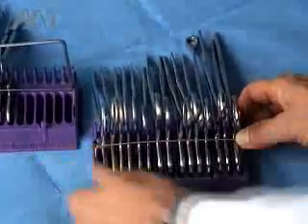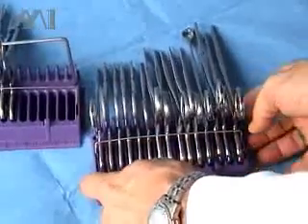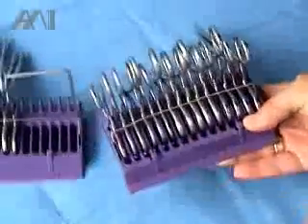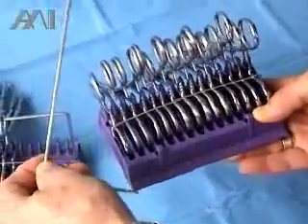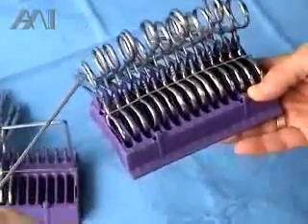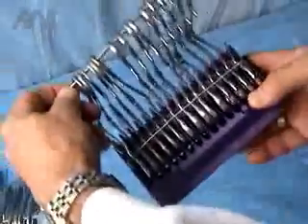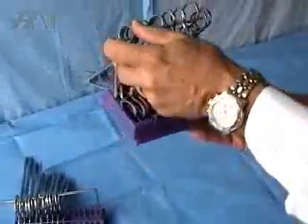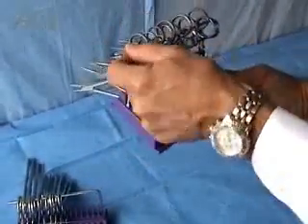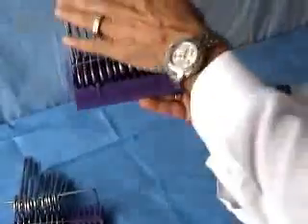They then lock the instrument with the stainless steel wire, and they can raise it to handle the instrument. Our L-shaped stringer replaces the standard stringer, and in very few seconds you can go through all the rings, make sure the instruments are open, and put the stringer into the hole on the side of the instrument, making it safe and in the open position.